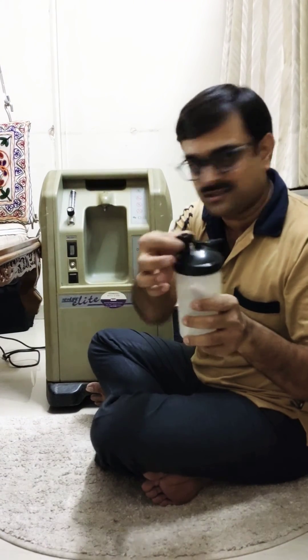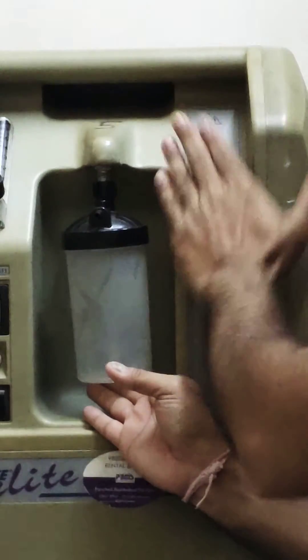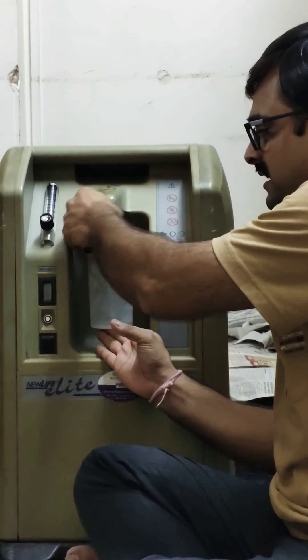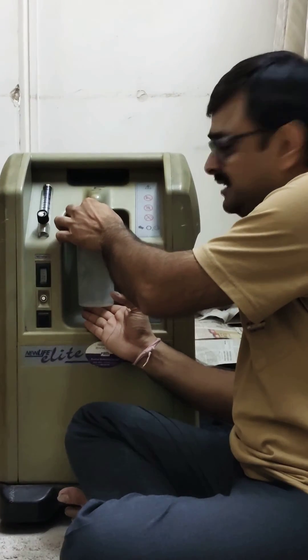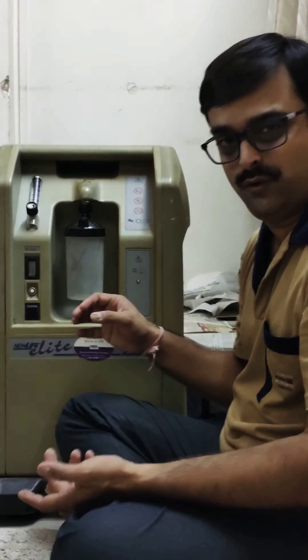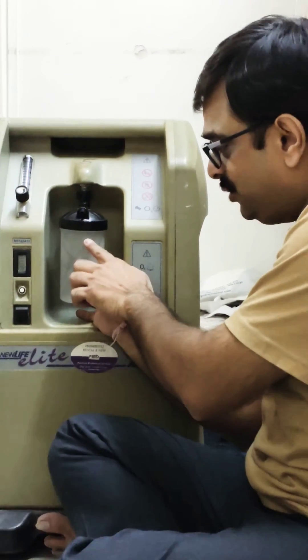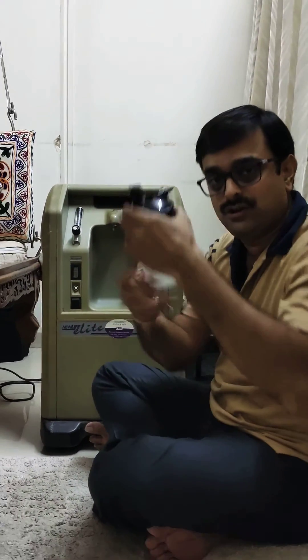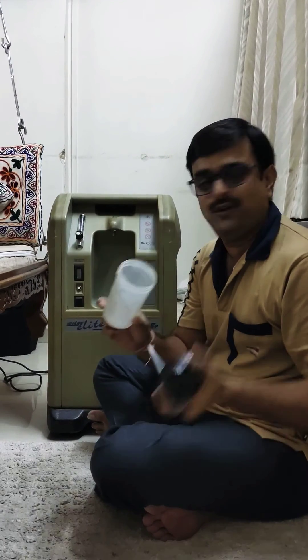The same logic goes for the knob fixed here — rotate it to the right-hand side until it is properly locked, not forcefully, just until there is enough pressure. This is how the bottle is fixed. If you want to remove it, just rotate it to the left-hand side. While replacing water, do not remove from here first — remove this top part, take the bottle completely out, then remove the cap and refill the bottle. So the topic of the loose bottle is now covered.